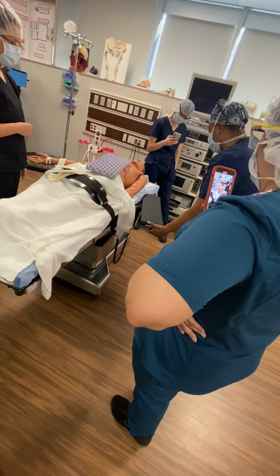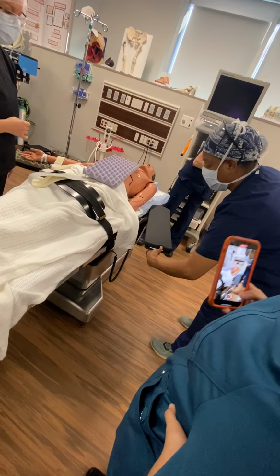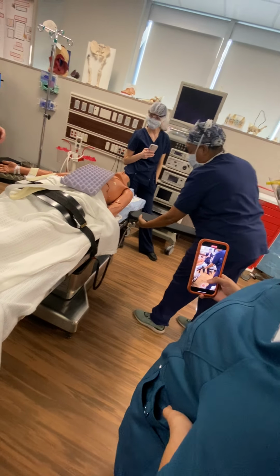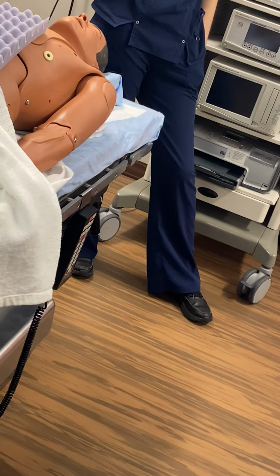To take it off, you just grab this part. Well, first I'm going to move it so it'll be easier for me to take it out. And that little toggle switch that you use to put it on, you're going to pull that and pull it up and out. Okay?